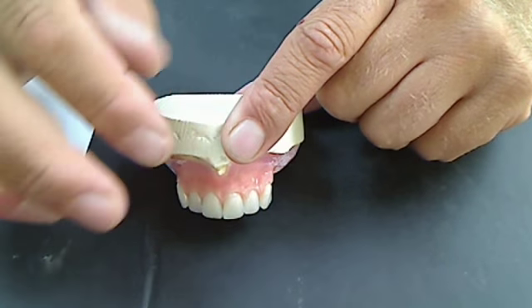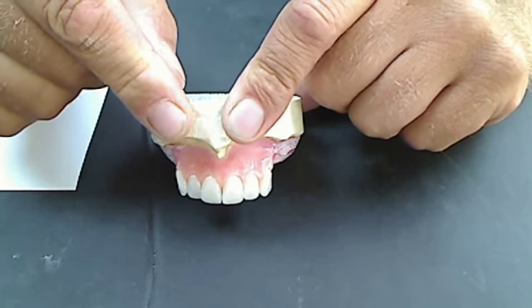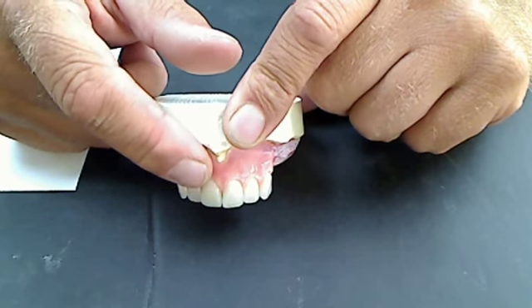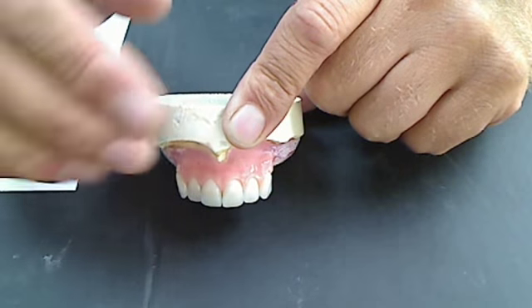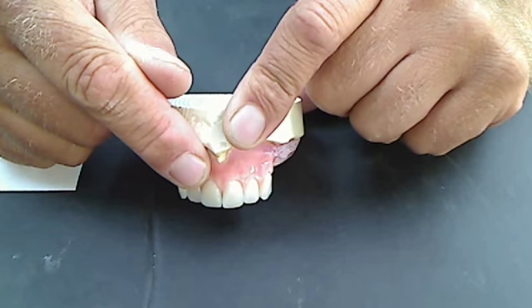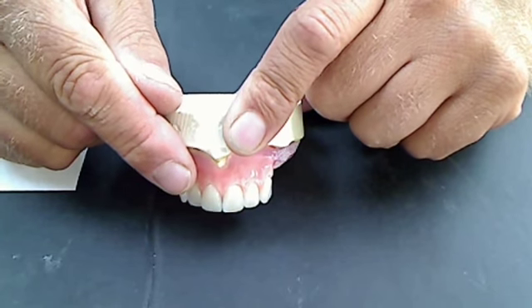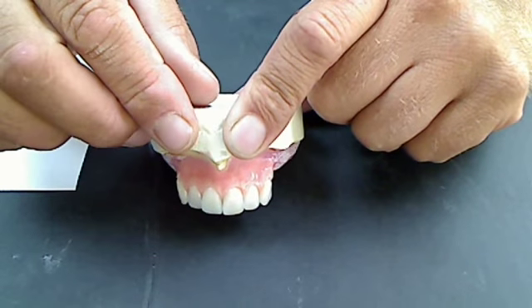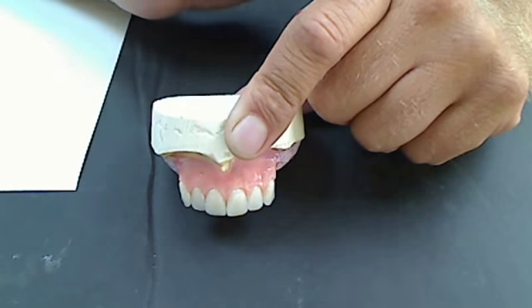So how do I do that? What I usually do is select a longer mold than I need — not a bigger mold, but a longer mold. Because that takes away the CEJ, puts it way inside, way underneath, so it's not going to affect where I terminate the tissue at the area where the CEJ may arise. It will change a little bit of how it emerges, but you can always bring that up until you're just starting to make the curve into the tissue. This is what's wrong with pre-molded CEJs — they dictate your emergence profiles.